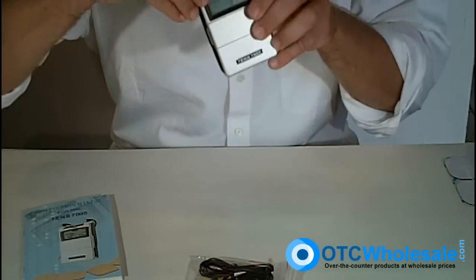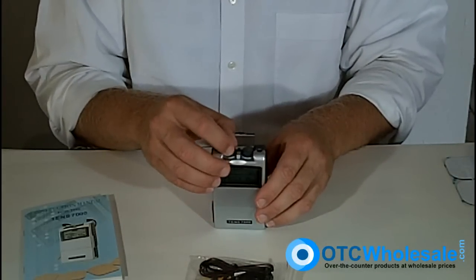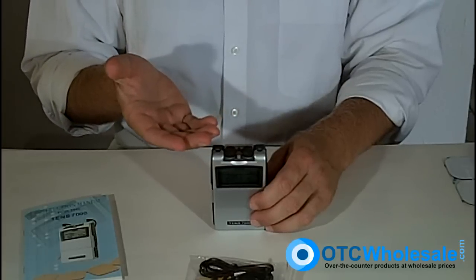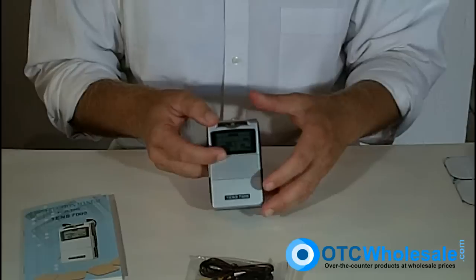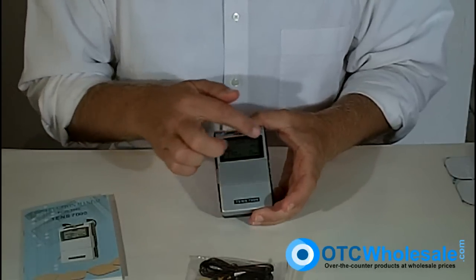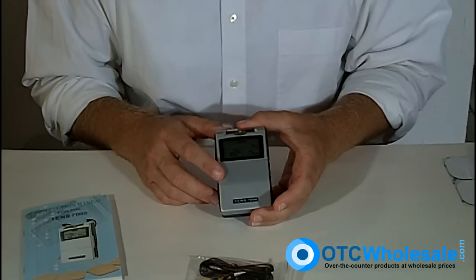If I just turn that on, you can hear that the unit comes on. I can set my intensity right there, then put the cover over top so the intensity doesn't get bumped on the road, so I can use it on the move. On the digital display I can see that the TENS unit is ready for operation.